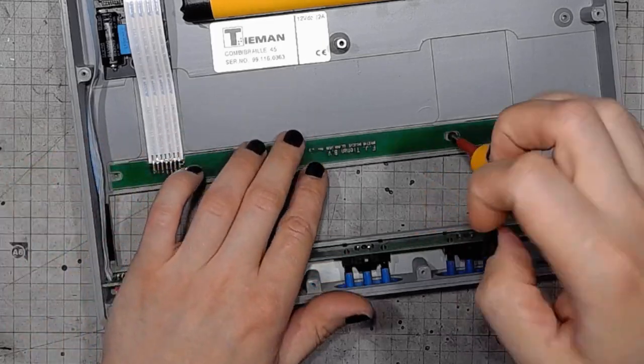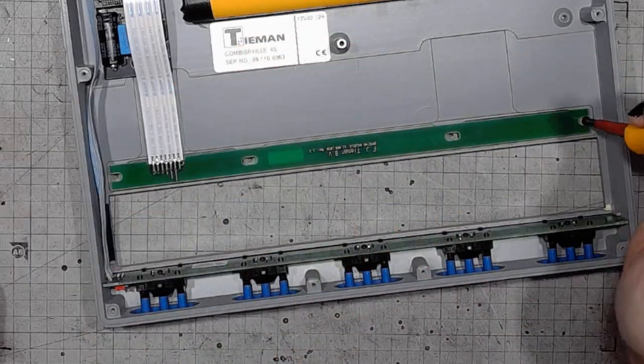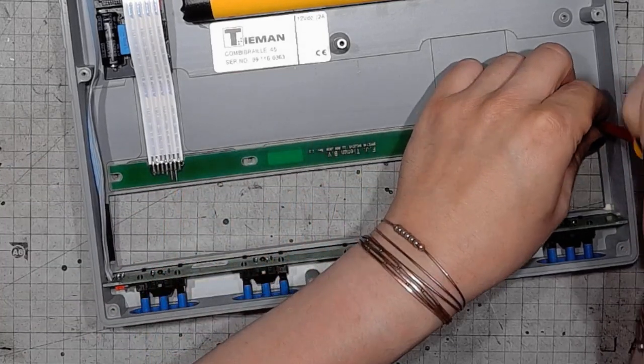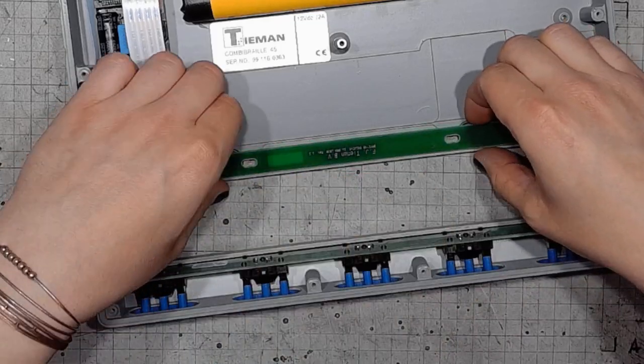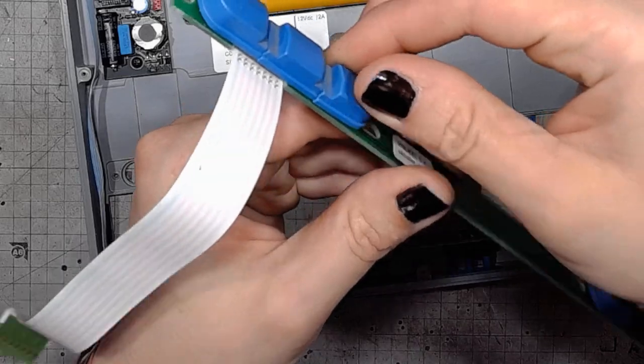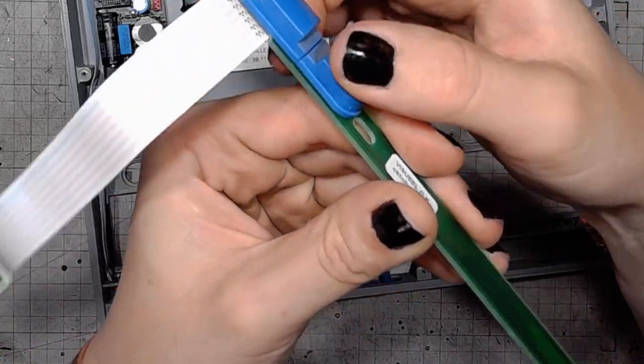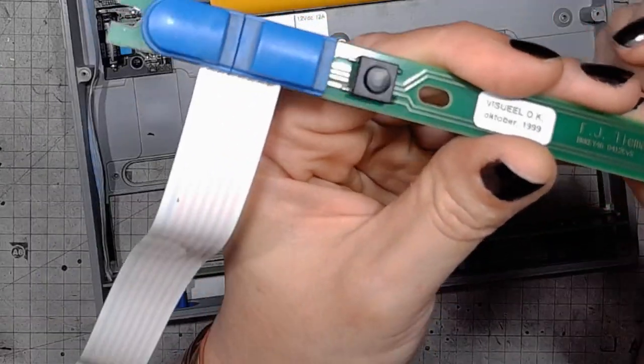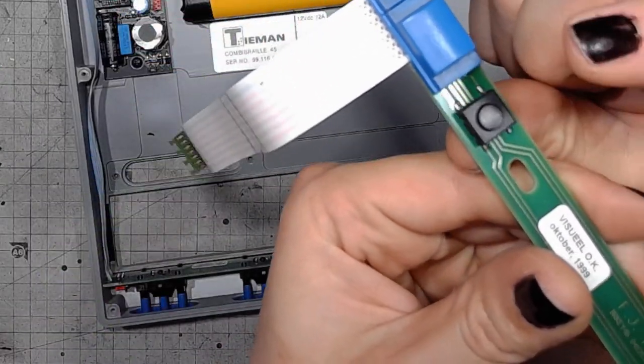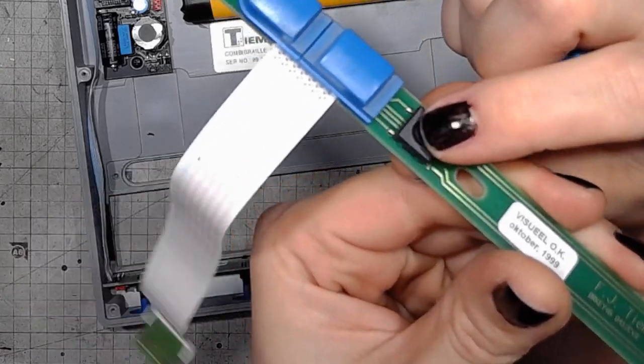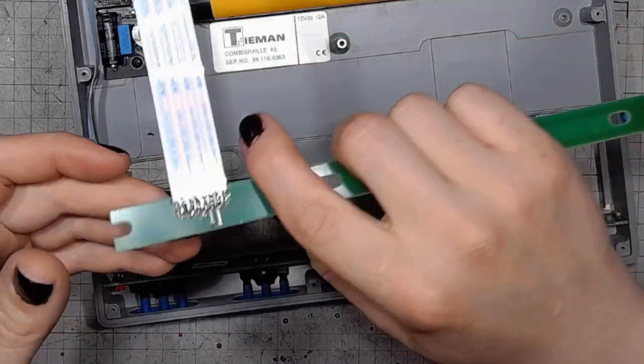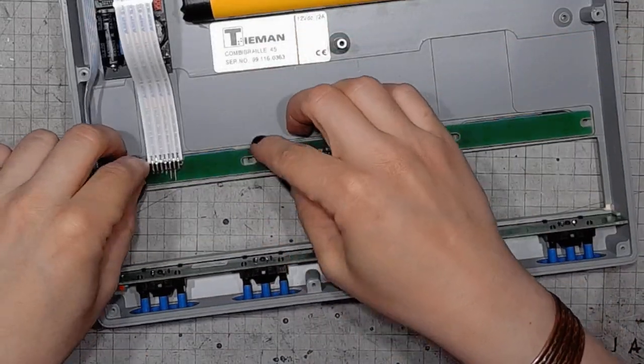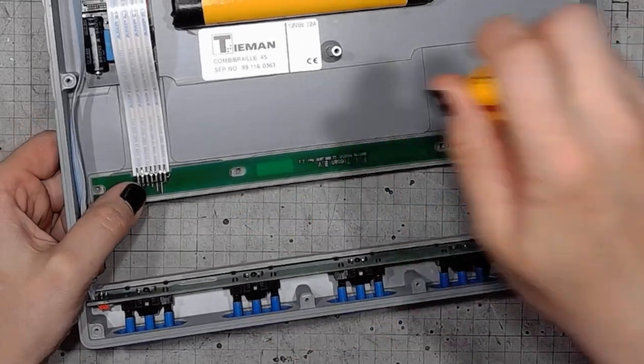Look at that. The marking layer and the copper layer is quite nice. Look at that, an overgrown tactile switch, engineered for reliability. None of that little tactile switch rubbish. They went whole hog.